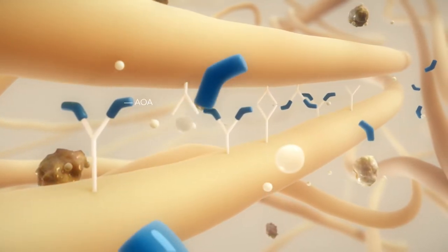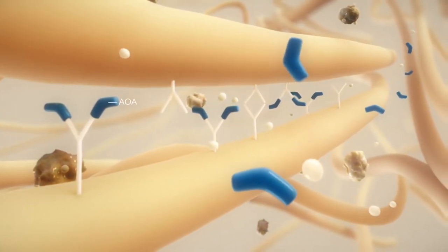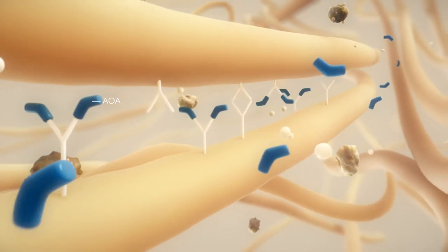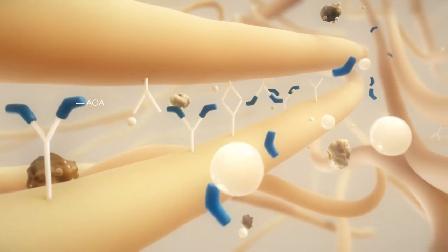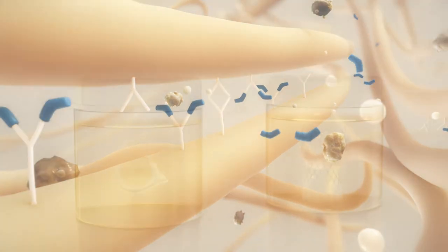In the block stage, AOA reduces the movement of calcium through tissue based on its size and charge. Studies show the AOA actually slows the movement of calcium through the tissue.